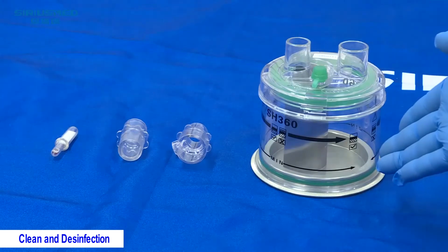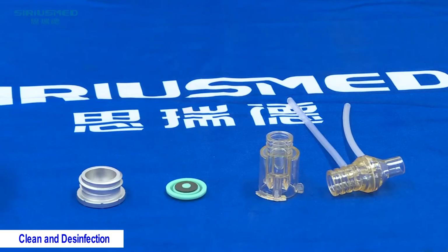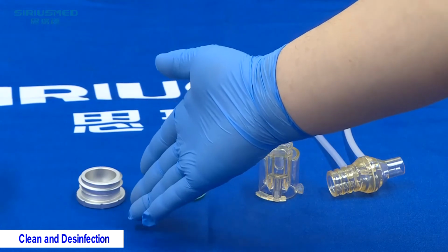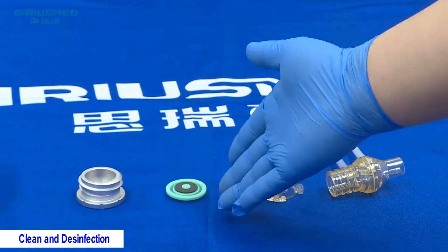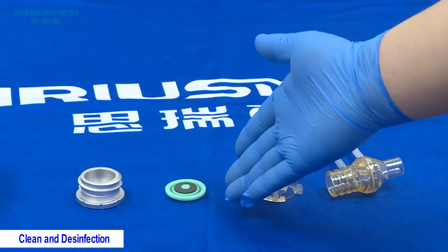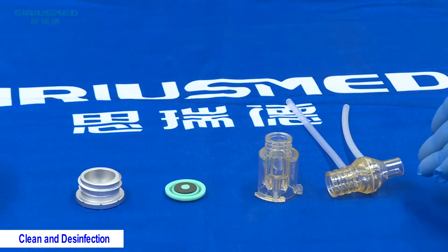Please pay attention to this temperature probe, this metal connector of the exhaust hose, this diaphragm of the exhalation valve, the exhalation valve, and the flow sensor probe.